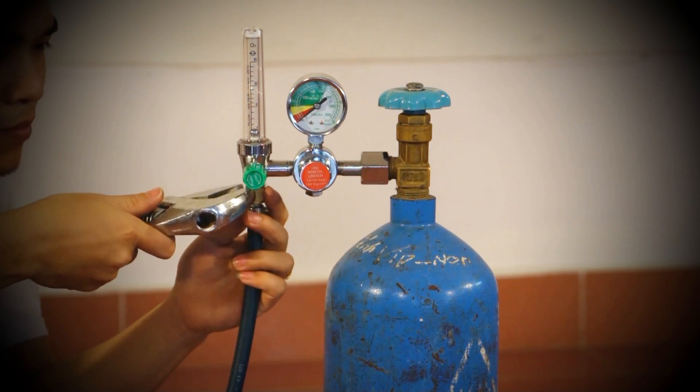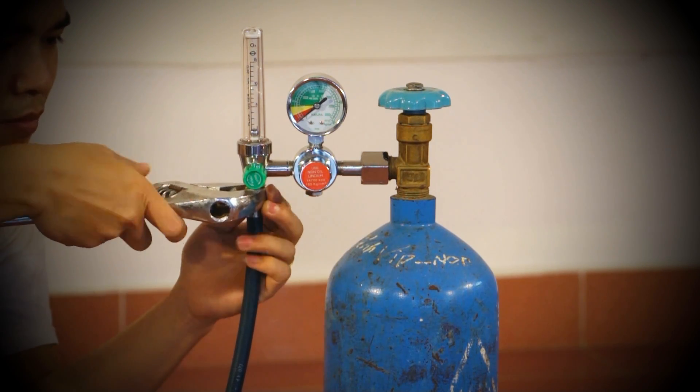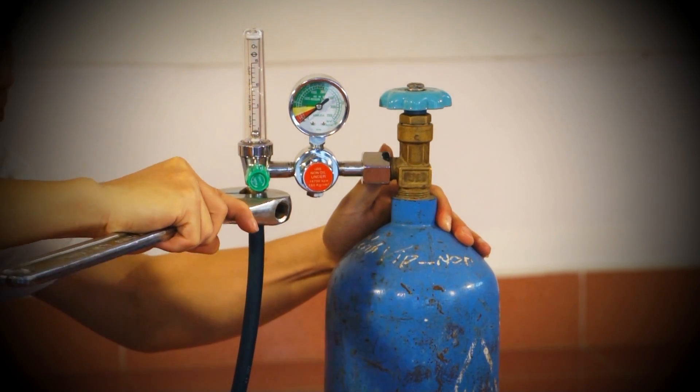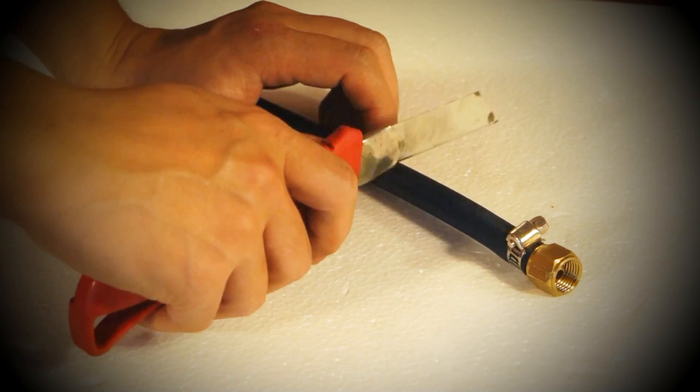If this connector does not fit your oxygen source, you will need to replace it with an alternative. Now we'll go over the steps to change the connector.